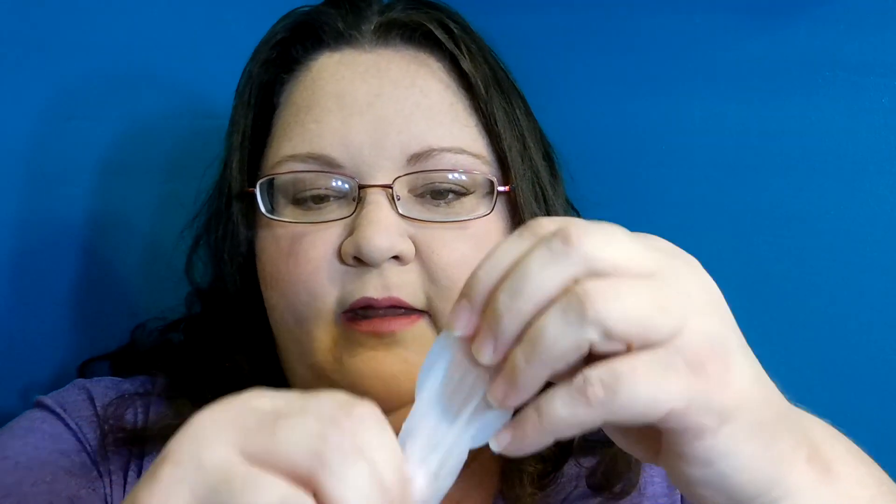But we're talking mainly today about the condom. Now this is a silicone condom. And if you are allergic to latex, you have probably experienced these before. But most of us do not have a latex allergy, and therefore we have not been exposed to silicone condoms. The thing with this is it comes un-lubed, obviously, because it is not in a sealed packet.